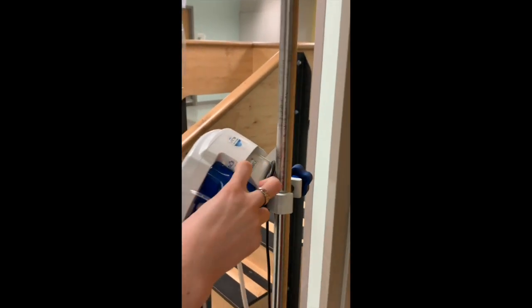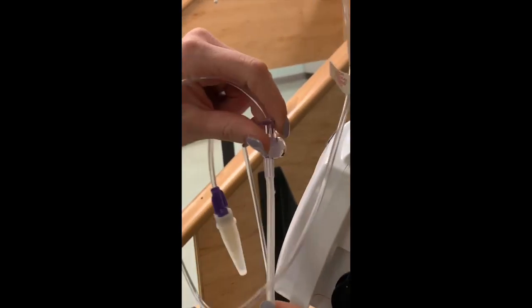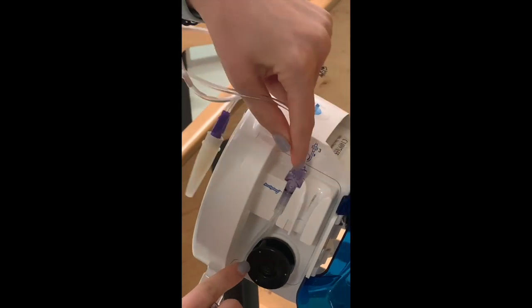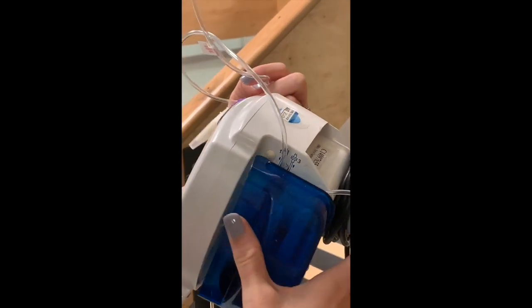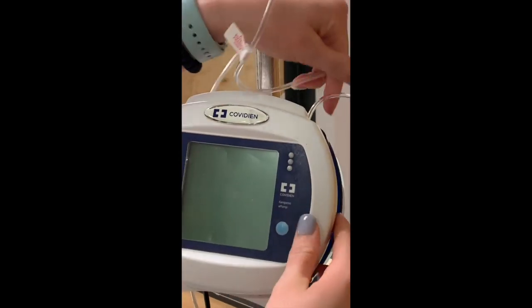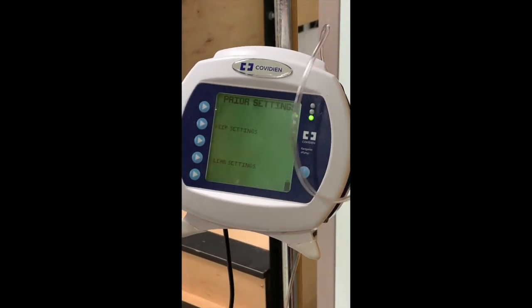On the side of the pump here, this pops open and you have this stretchy part of the tubing similar to the tubing that goes into an IV pump. So in case you ever forget, there are really easy 1, 2, 3 instructions loaded on there. You're gonna put this little tab facing out, stretch the tubing around and set it up in there. Once that's locked into place, you can close it and then your tubing set is in. So we're gonna turn the pump on. There we go. And then I'm gonna show you how to prime it.